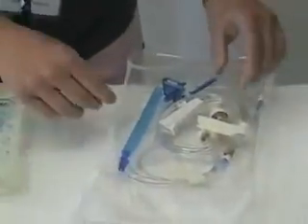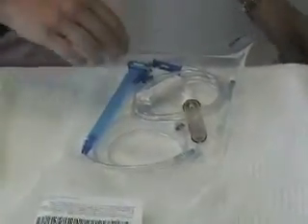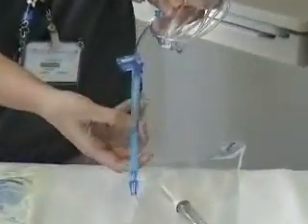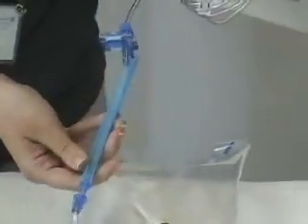So we'll open up our set here. We like to keep this on because this part of the tubing is very sensitive and we're going to want to stretch it out to put into the pump. So we'll leave that together.